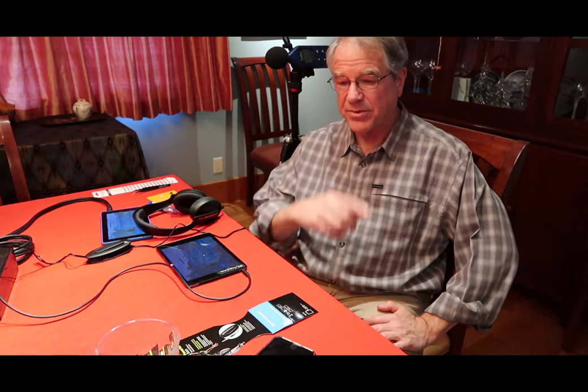Hi, I'm Dave Miller. I work at Hearing Games. I've been working on calibrating headphone setups for audiometers. It's a pretty straightforward process that I've developed — kind of old school. It's the way they used to do it long before they had artificial ears that they could plug audiometers into and get much more accurate measurements.